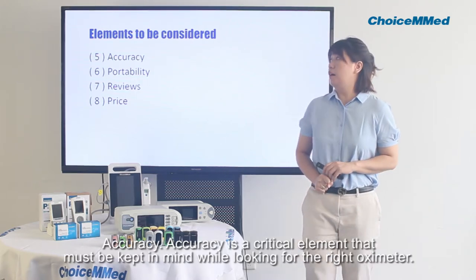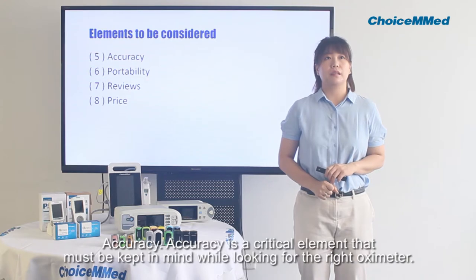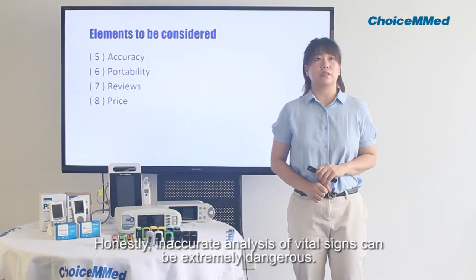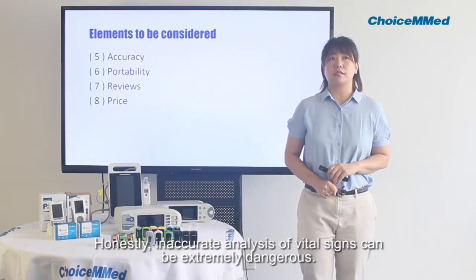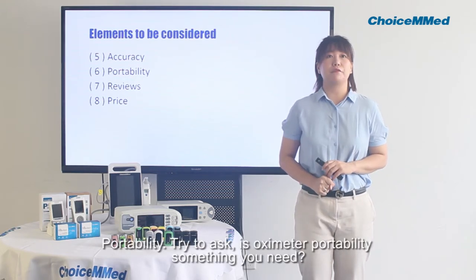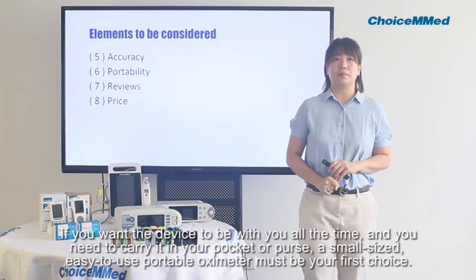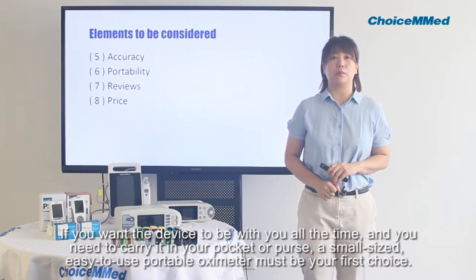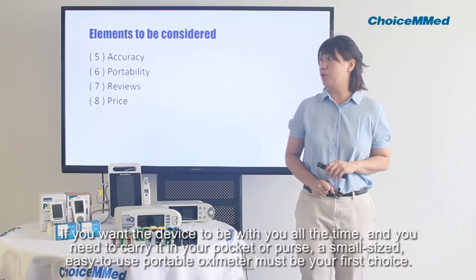Accuracy is a critical element that must be considered while looking for the right oximeter. Any inaccurate reading of vital signs can be extremely dangerous. Portability is also worth considering. If you want the device to be with you at all times and you need to carry it in your pocket or purse, a small-sized, easy-to-use oximeter must be your first choice.